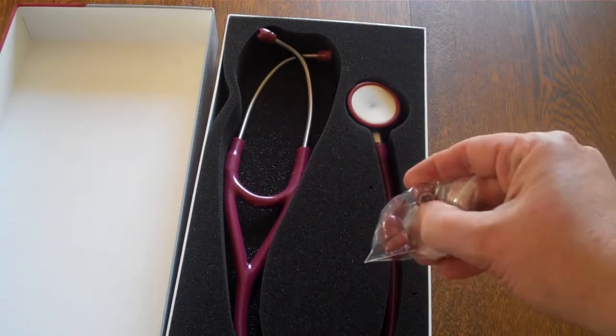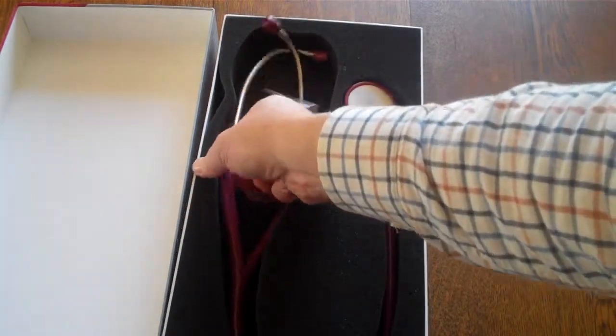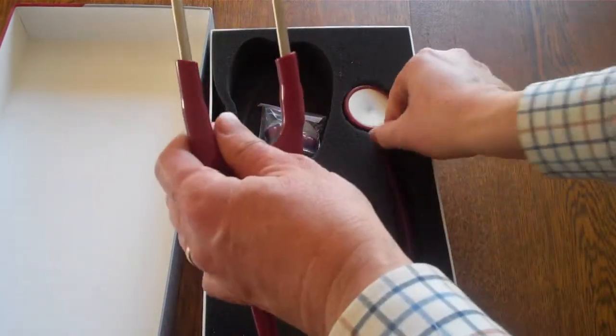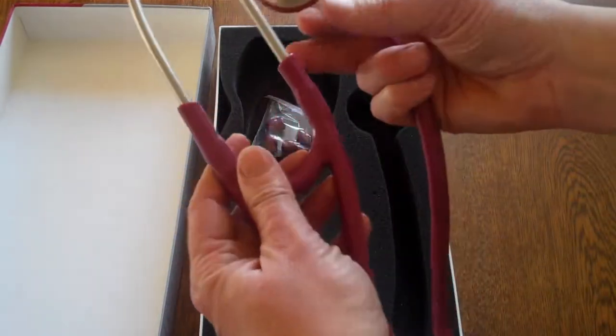These are screw fitting ear tips, and if I remove the stethoscope for you to have a look at, you'll see this burgundy model.